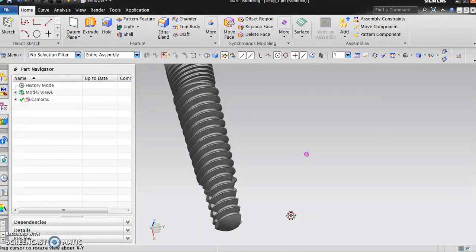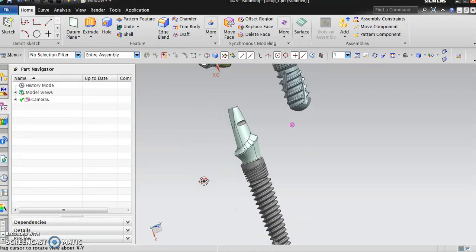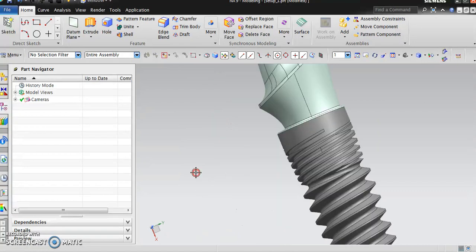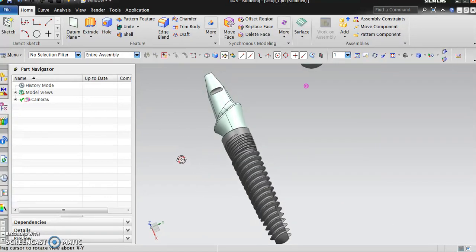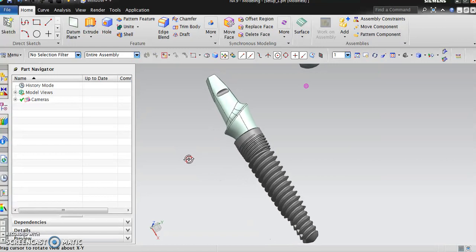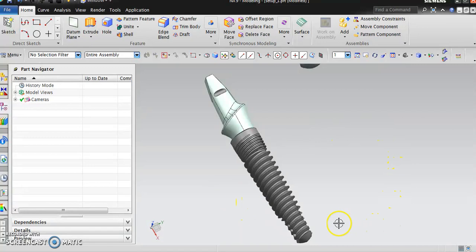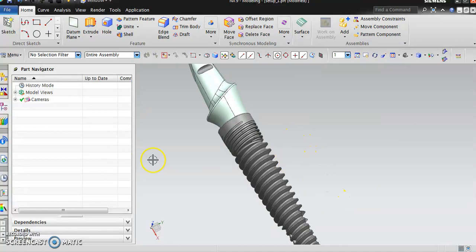You can see that the first part of the stem is a conical stem. We're going to make a conical stem and then come back in with an end mill to make the flutes. The flutes have to be sharper because those are cutting flutes. Then we can either single point turn the buttress threads or we can use the thread whirling.